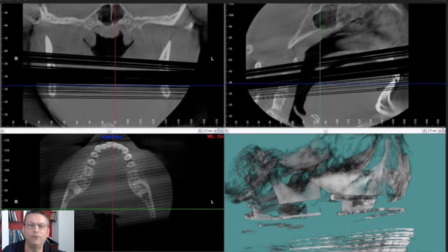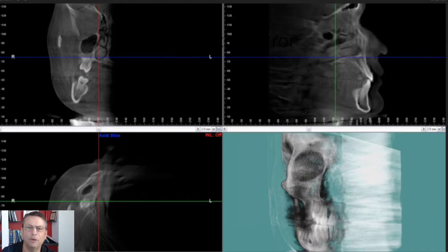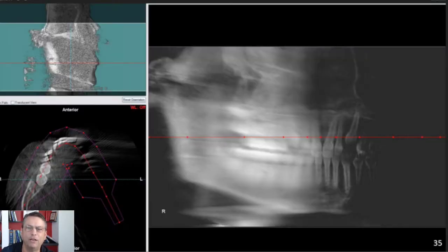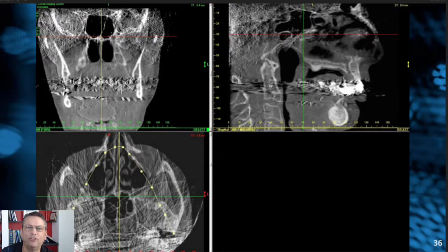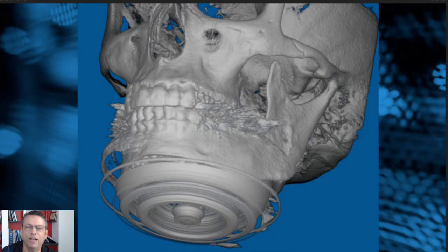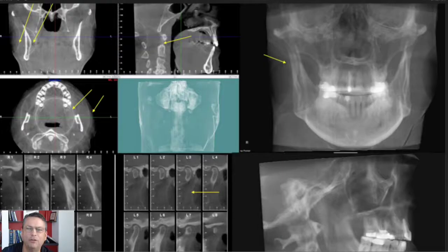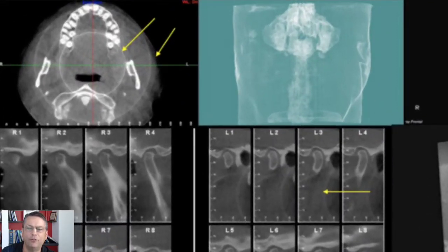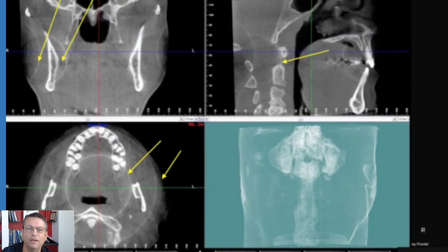If you have a scan where the data is corrupted, it might be a calibration issue. The more that you calibrate, the cleaner your scan is going to be. These are just some cases I've received over time — some even from our own offices where we made mistakes. As you can see, if your scan has noise introduced into it, calibration is something that can easily fix it. Sometimes the calibration artifact has a pretty, artsy look to it, but other times it's very subtle — you can see there are rings on this scan if you look closely, and they appear in every projection.